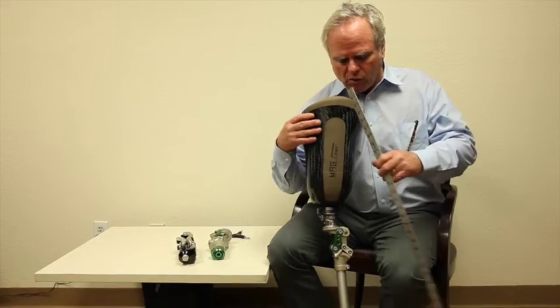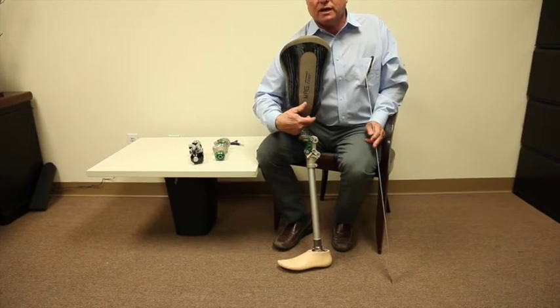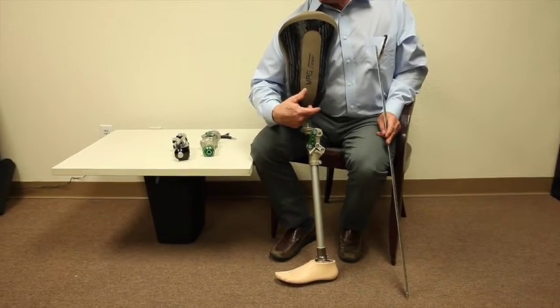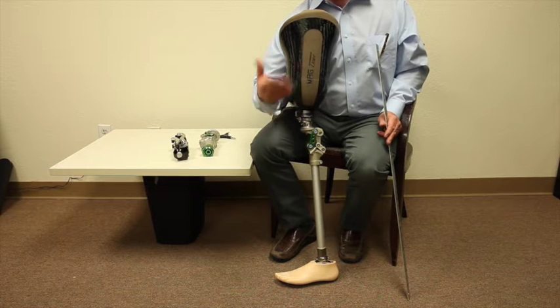If you tilt it forward, you're bringing the knee center closer to the socket. That means the patient needs to be more in control. The patient needs the strength. You align it accordingly.